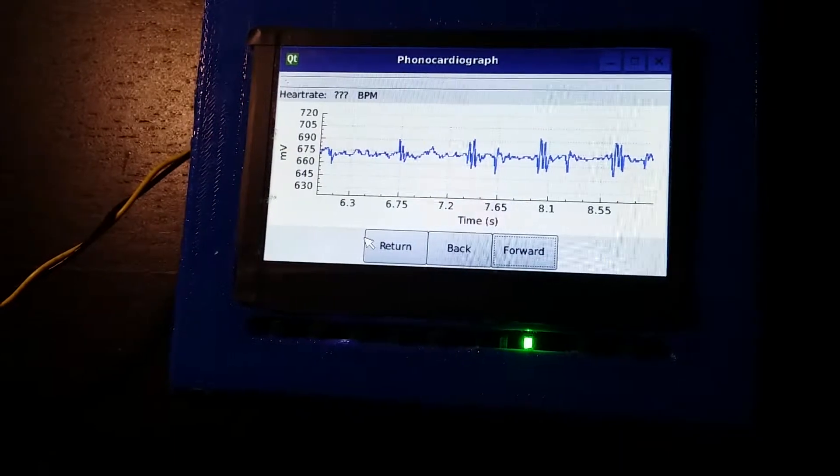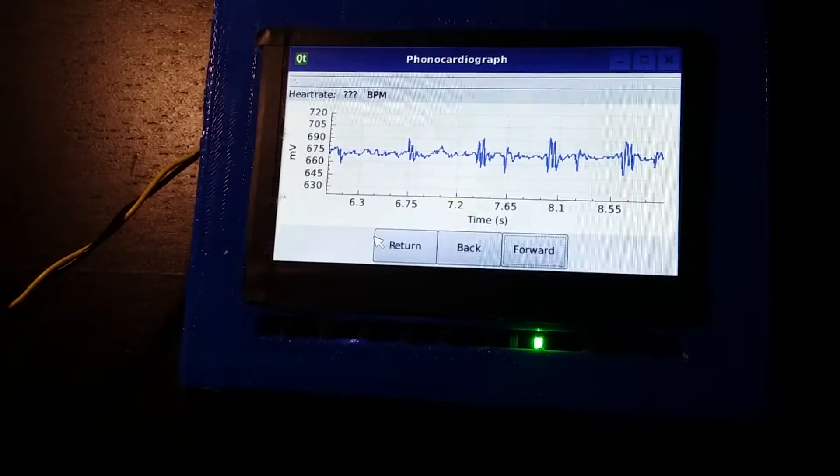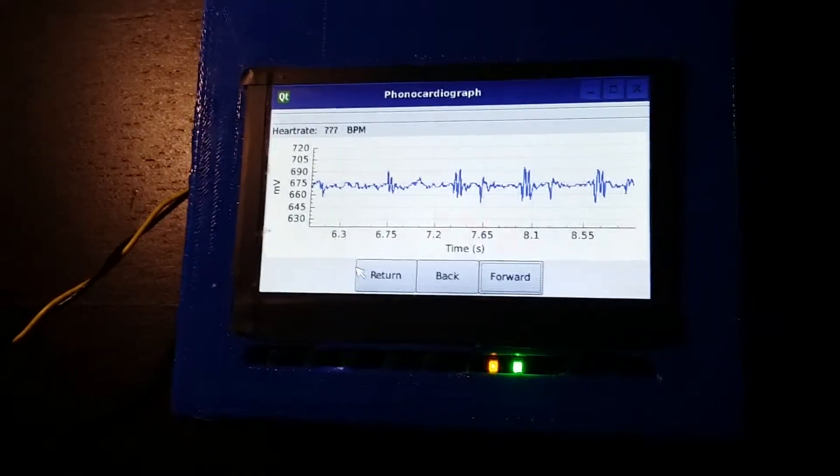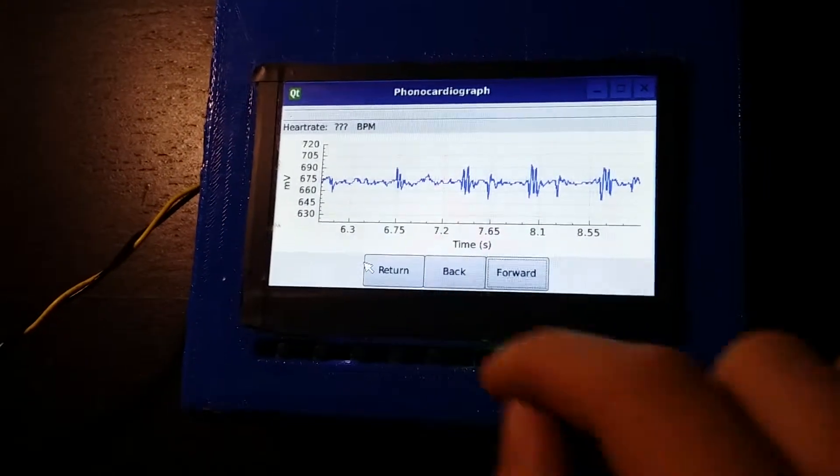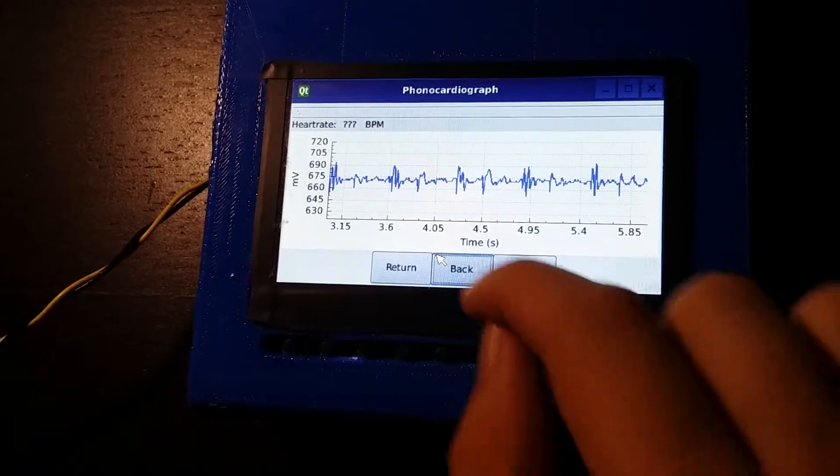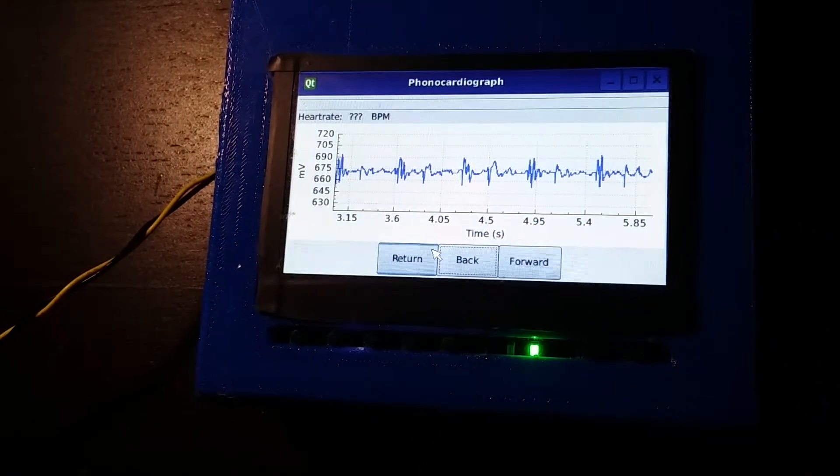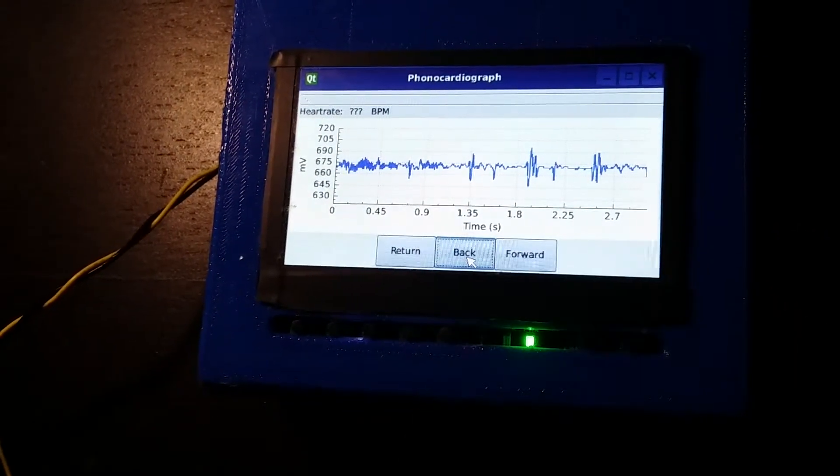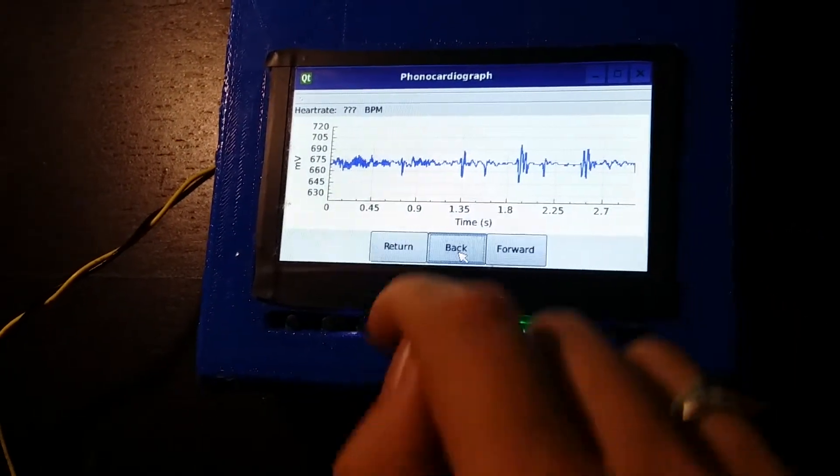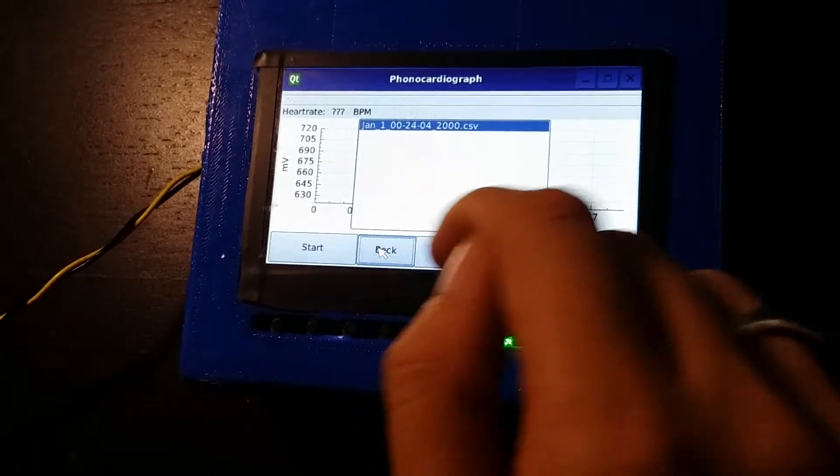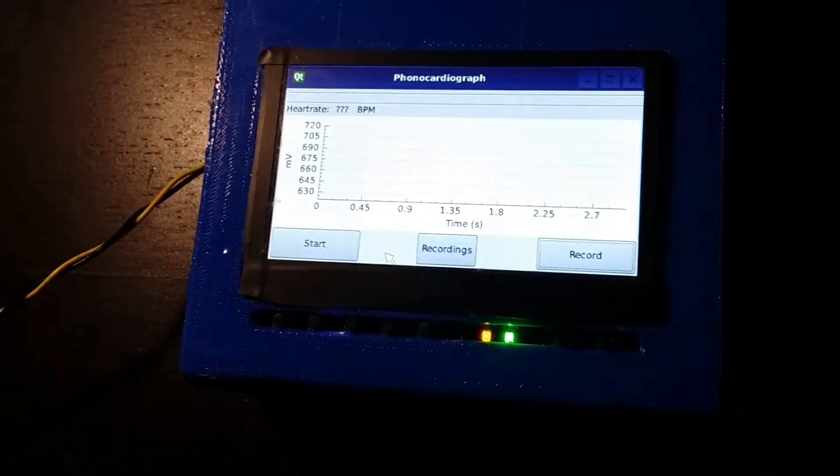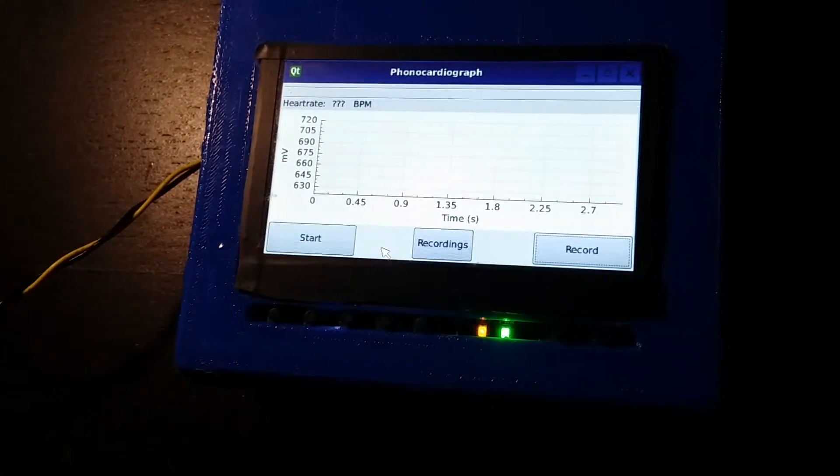and the operator can go back and review the waveform from the heart, find any anomalies that the patient might have had. And this is the device.